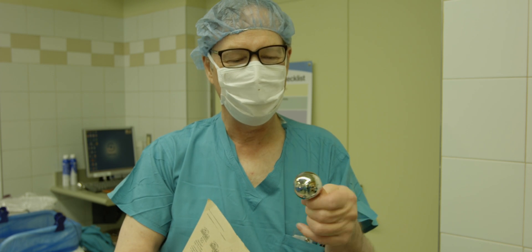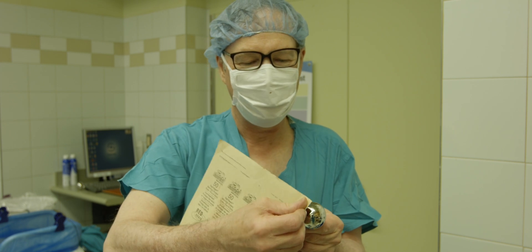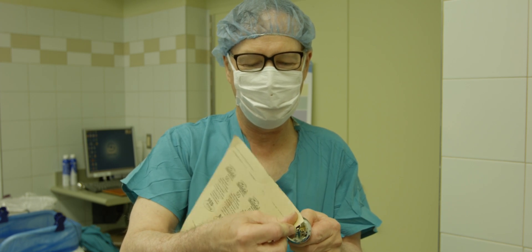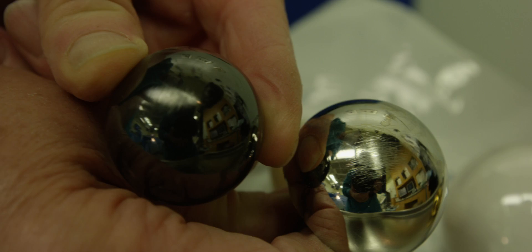So it's perfectly unused, never blemished implant. I'm just going to rub it on there a little with normal finger pressure and see what happens. And you can see the pretty impressive scratch.